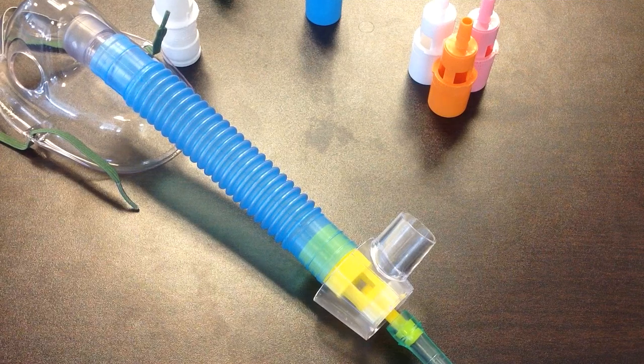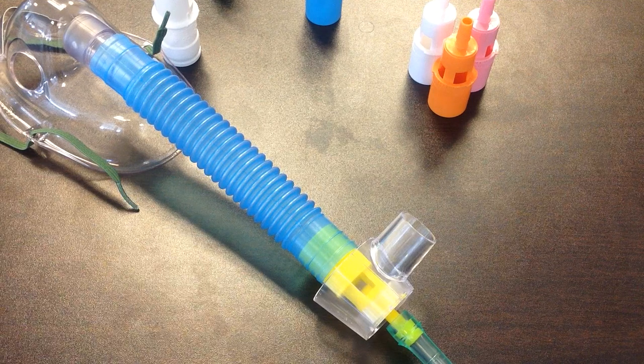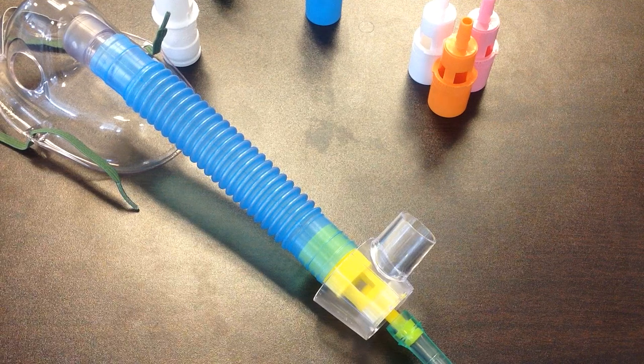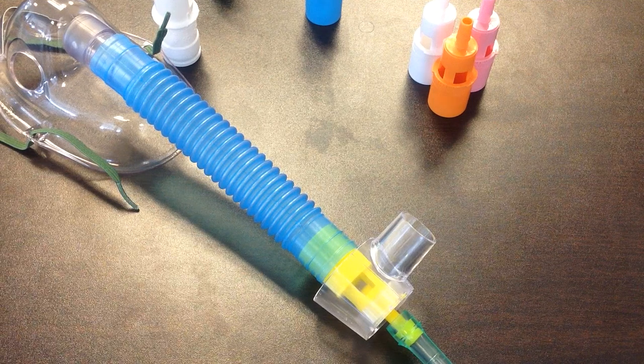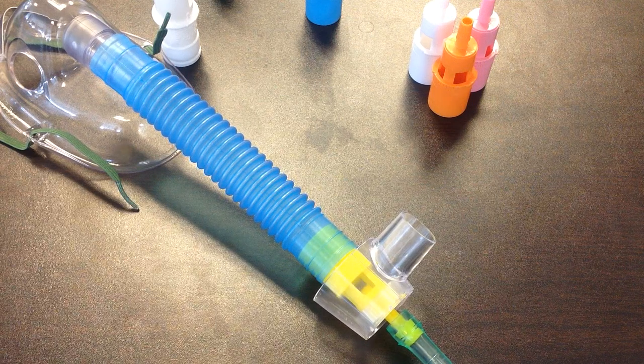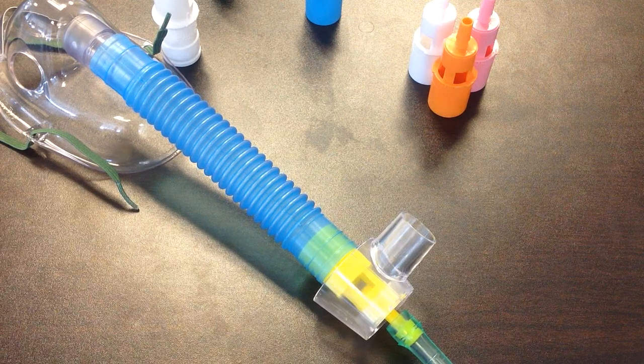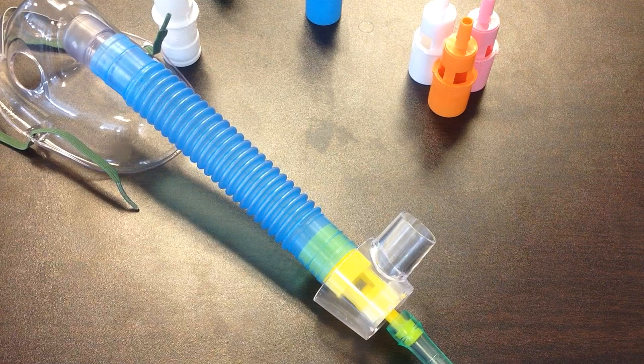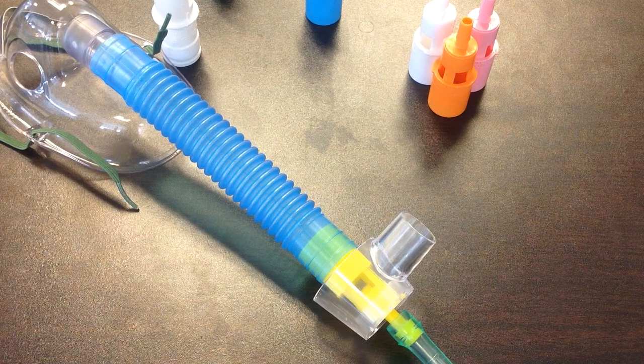And therefore, the patient will be guaranteed to get 28%, whereas with a low flow system, it depends upon the patient's respiratory pattern. That is the Venturi mask high flow oxygen system.